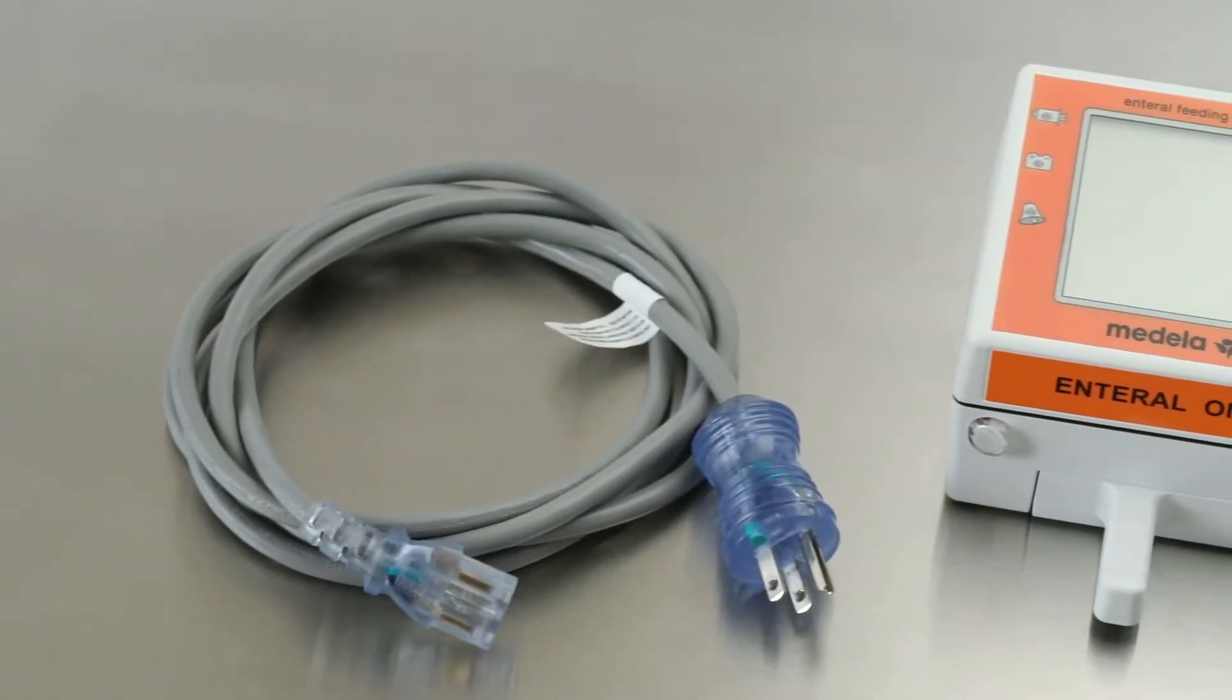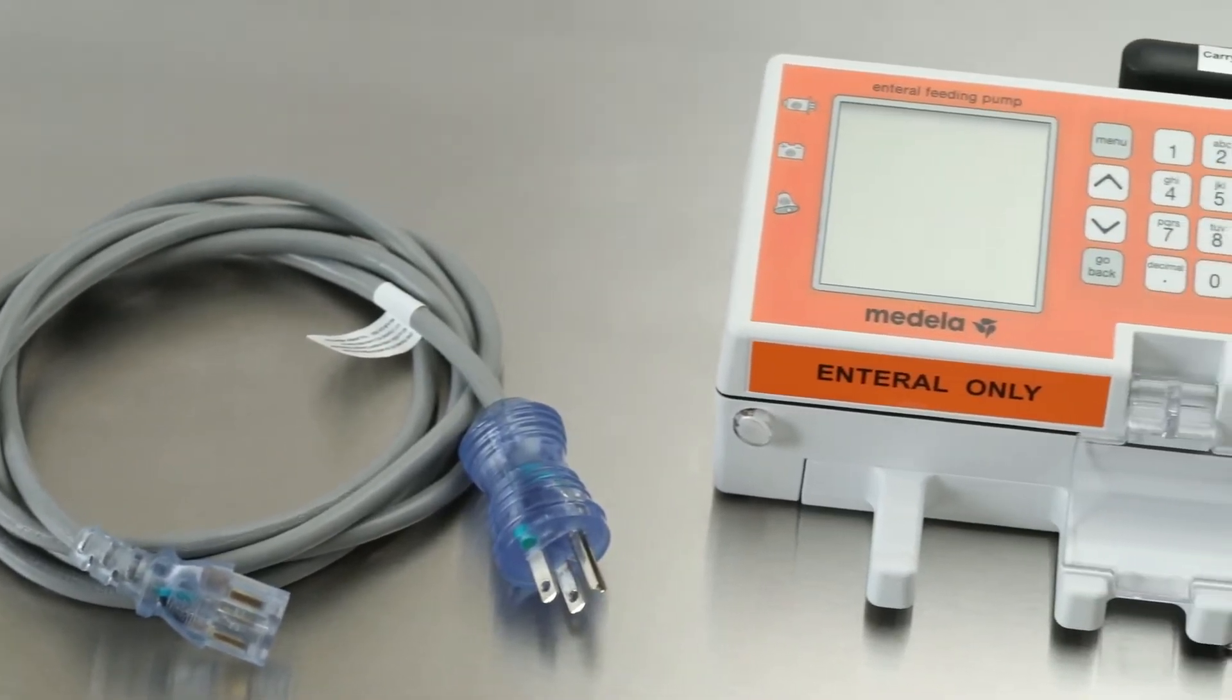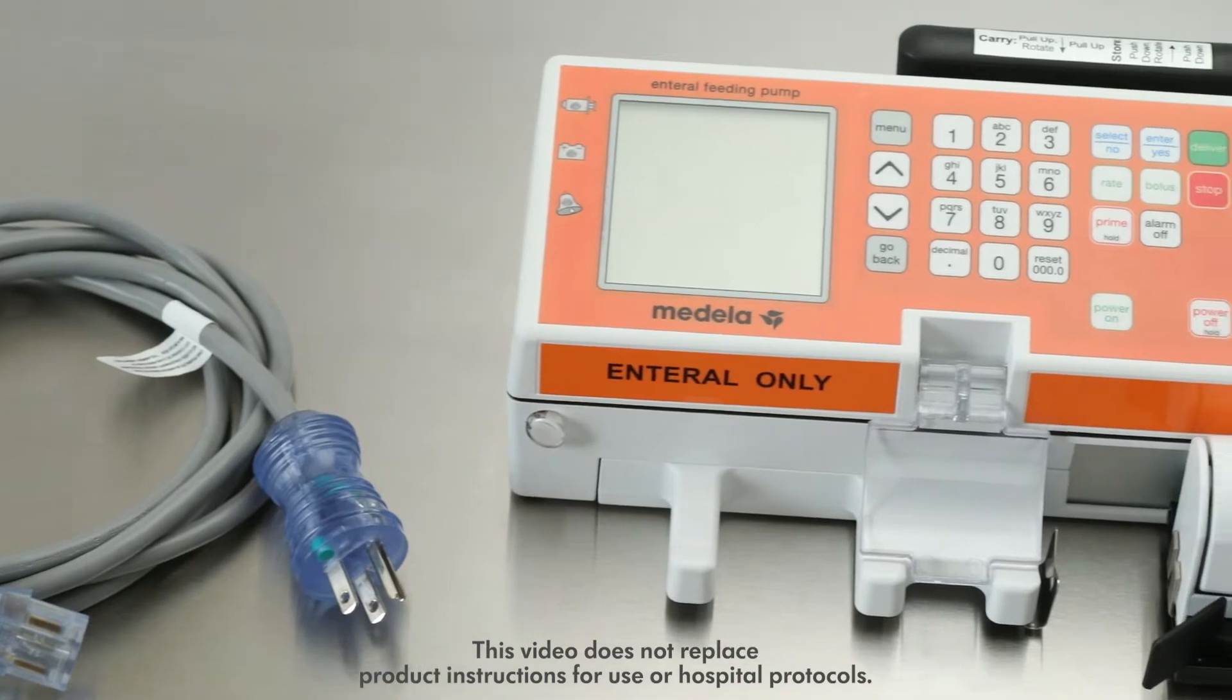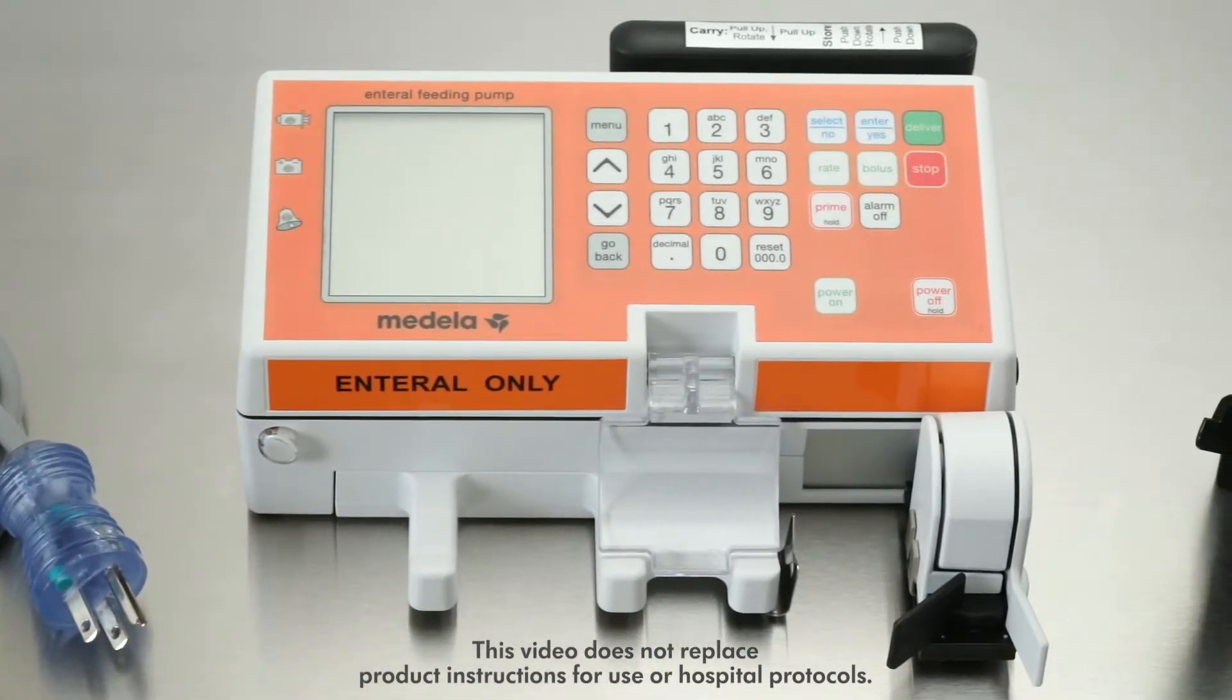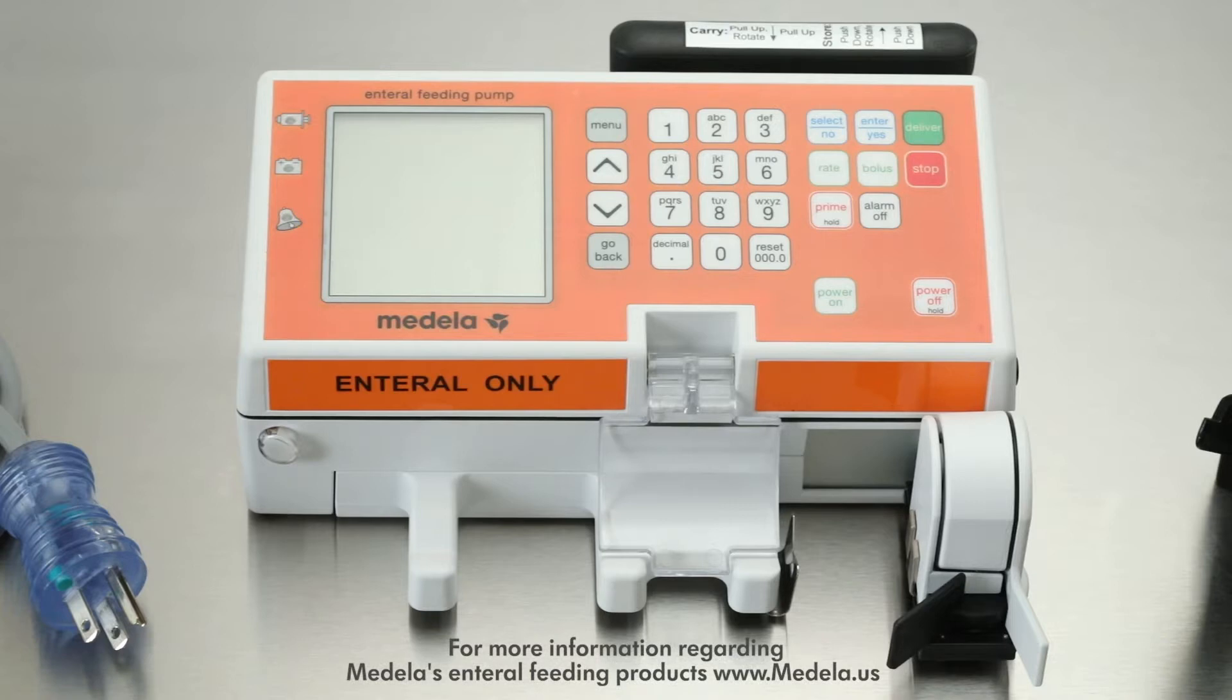The Medela Enteral Feeding Pump is the optimal solution for continuous or bolus feeds which require a syringe pump option. The compact size, minimal weight, sturdy construction, and safety Enteral Orange coloration make it the ideal complement to any NICU Enteral Feeding System.